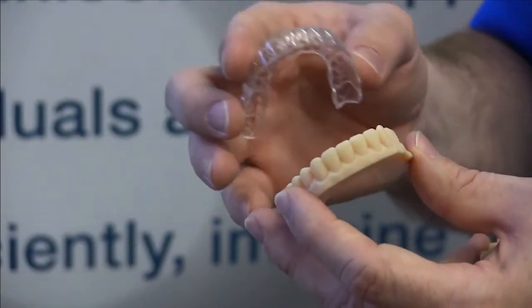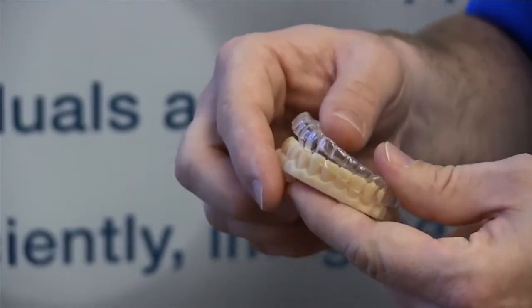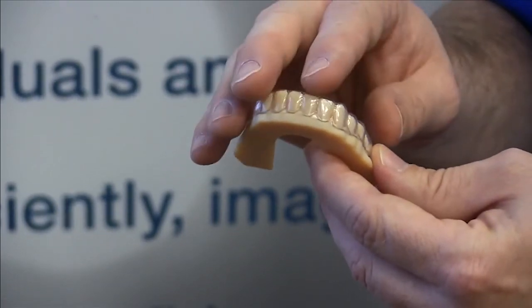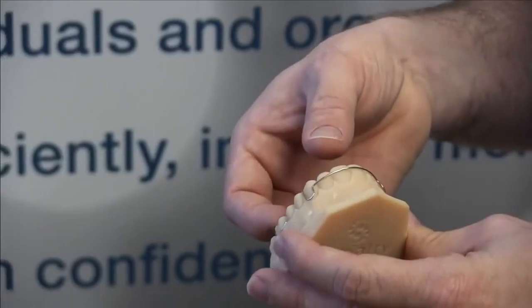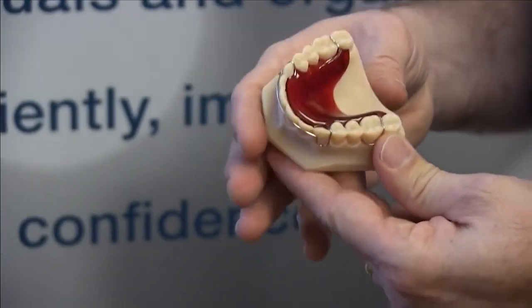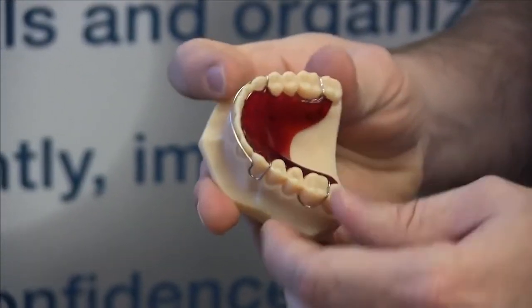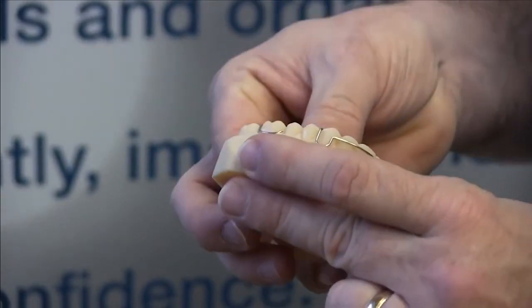What this does is allows the patient to keep their teeth in alignment after they've had their braces taken off, and they don't tend to have tooth drift as much. Some of the other appliances we make are a traditional retainer — this is an acrylic and wire retainer for holding the teeth in place after orthodontic treatment.